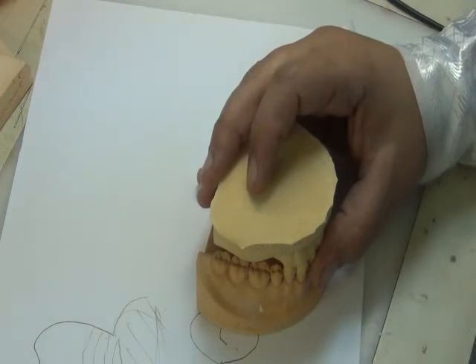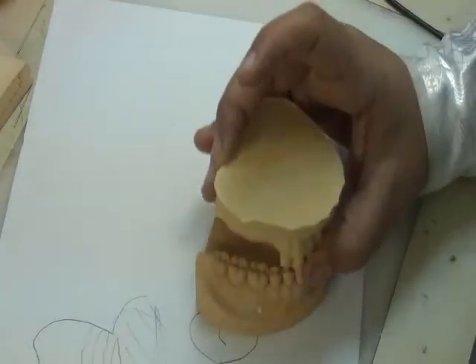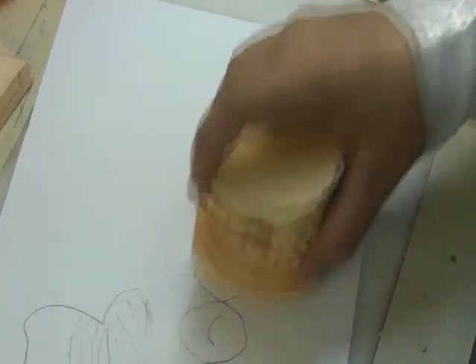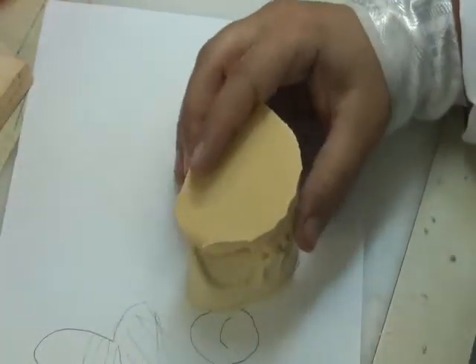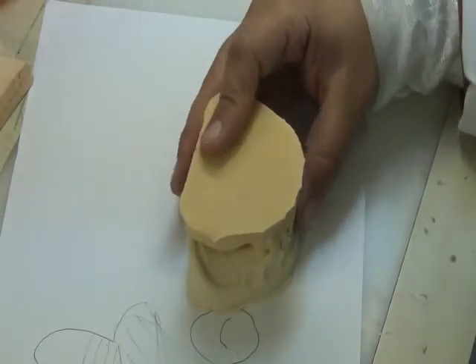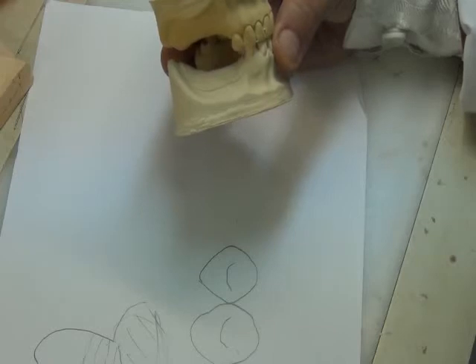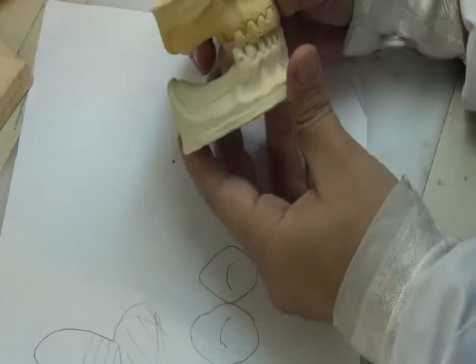I don't even need parallelism because I have the lower occlusal table regular. I don't need to use the Fox plane and record parallelism. But suppose we have the other case where we have two free-end saddles opposing each other. In this case, for example, I have an upper free-end saddle and a lower free-end saddle. I can let the patient bite on his regular bite, which is guided by the teeth.